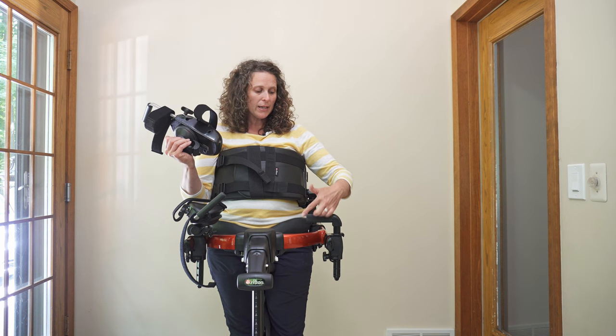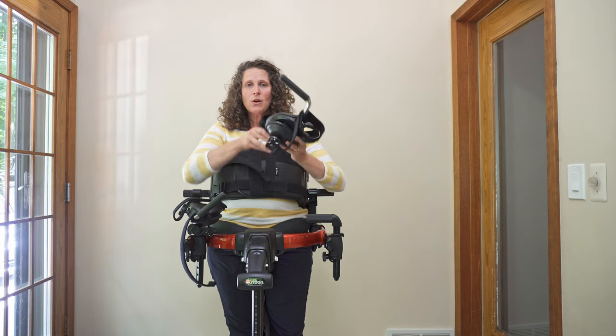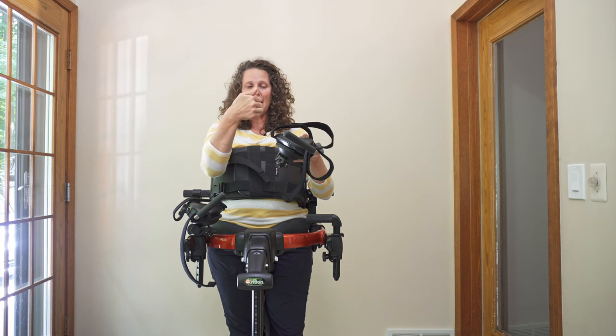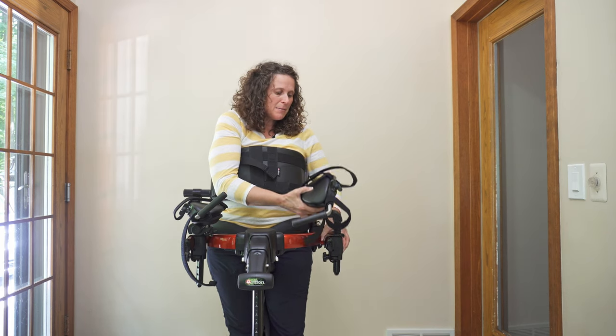The importance of the L-bar being either in or out is so that it can slide on the grooves and go up or down rather than side to side, if the bar is facing forward or back. Because I have my L-bar facing in, I can change the angle of the arm prompt.